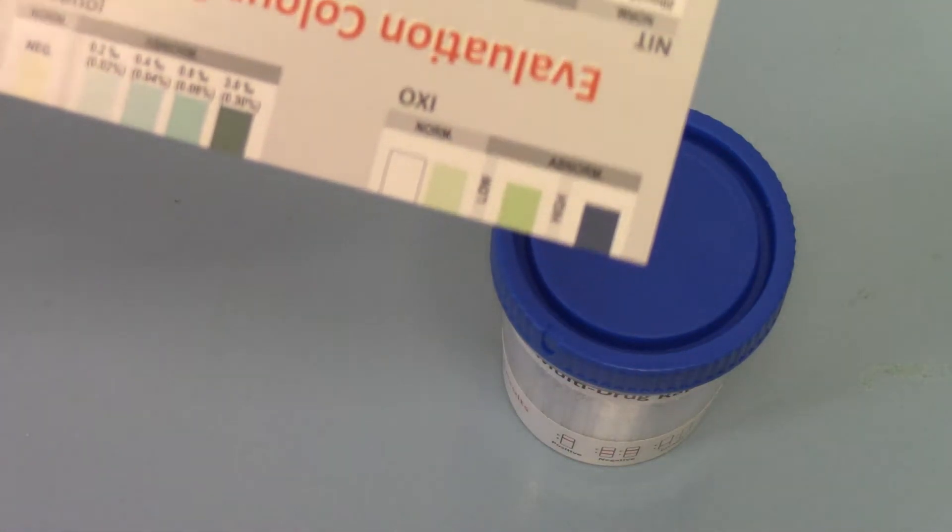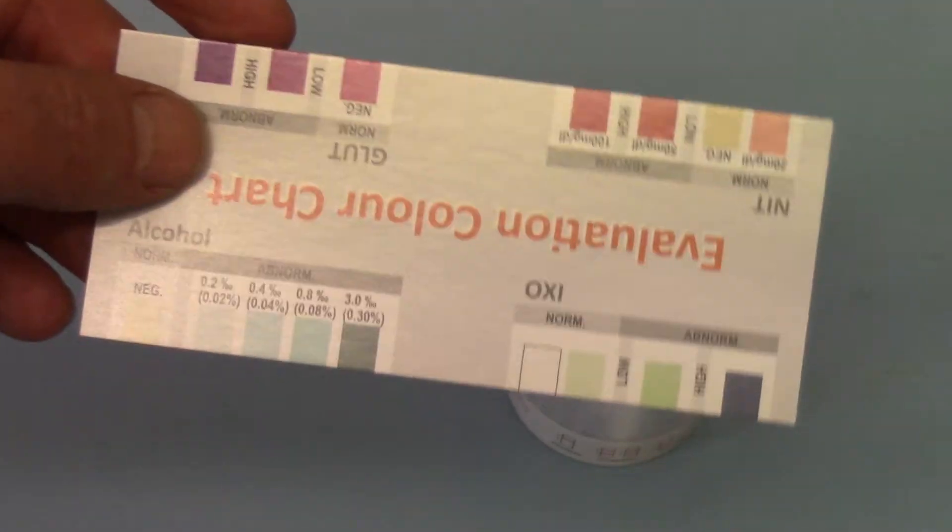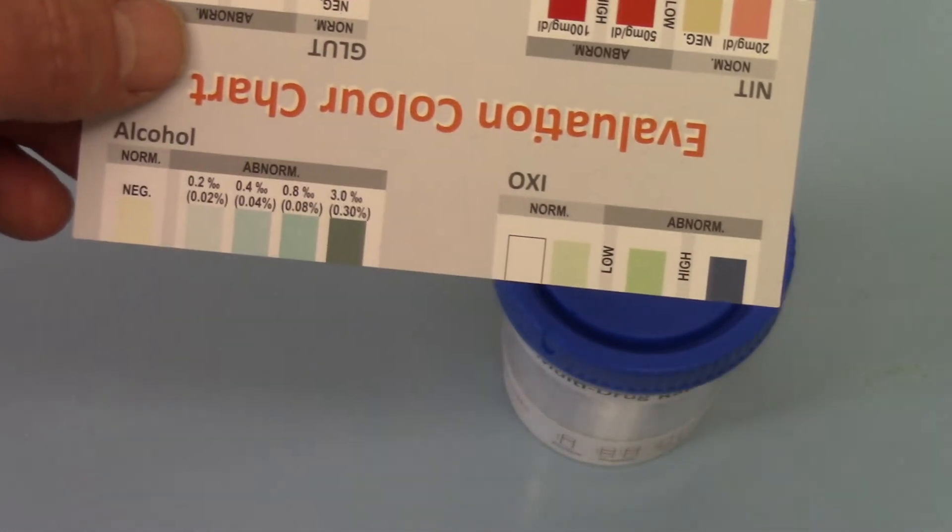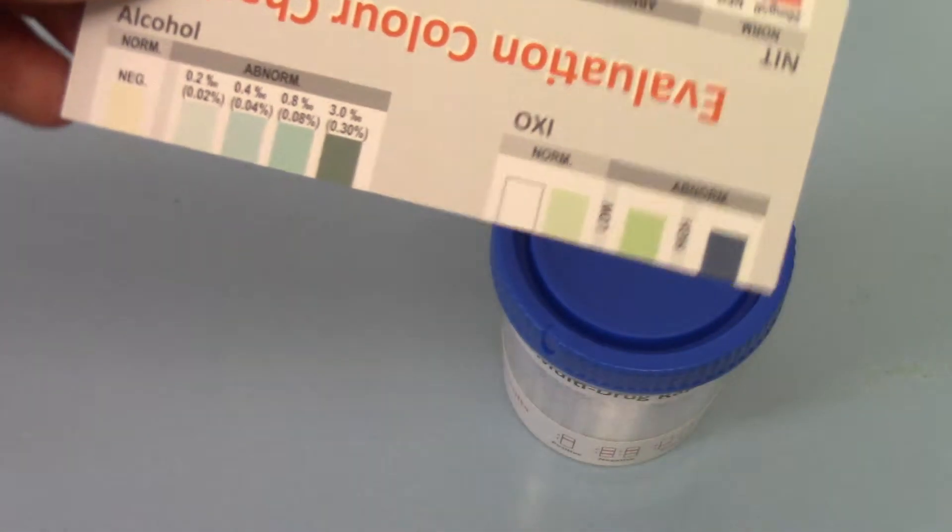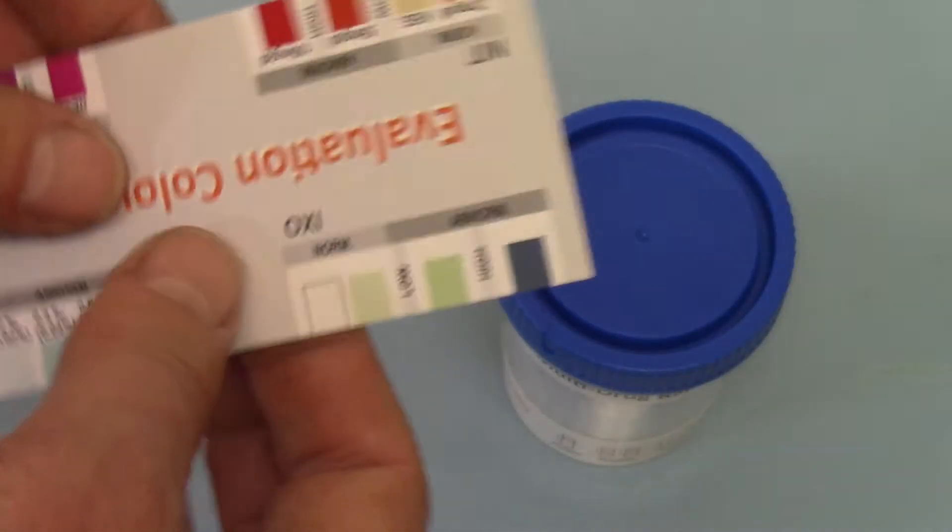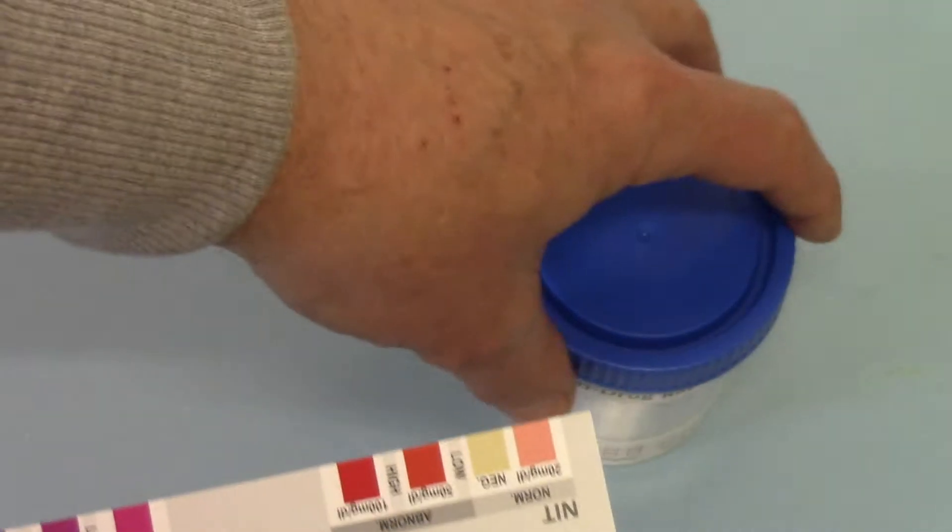They're not all apparent or won't all be present on some of the test cups that these are provided with. You may have three of the seven or you may have six of the seven, and the other one is oxidants here.